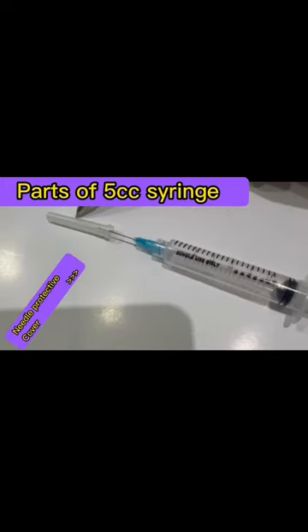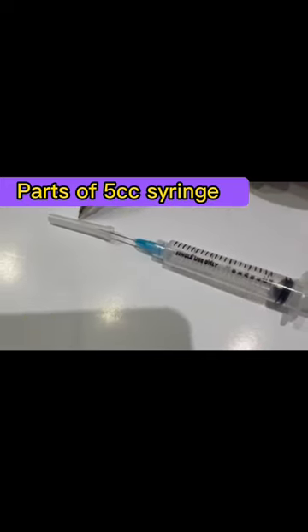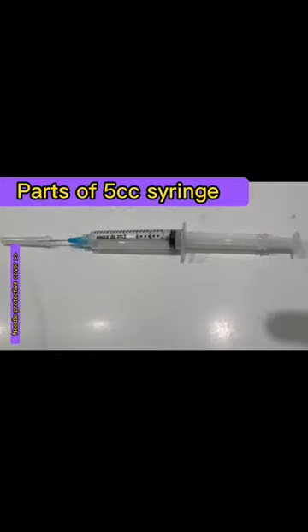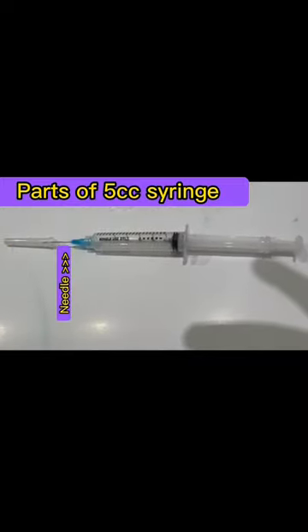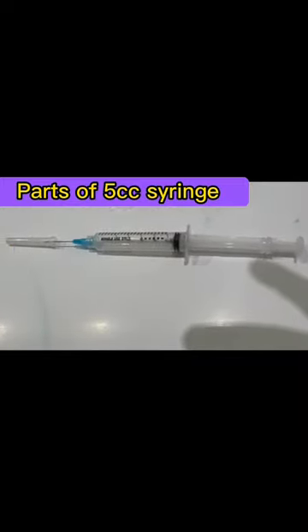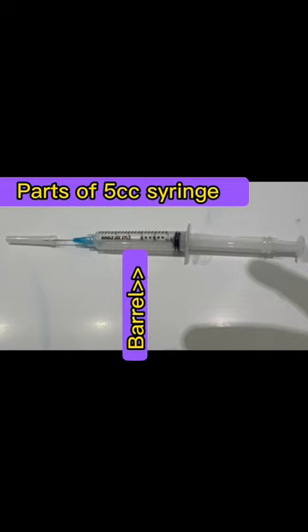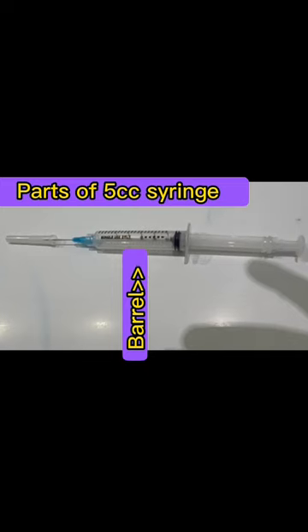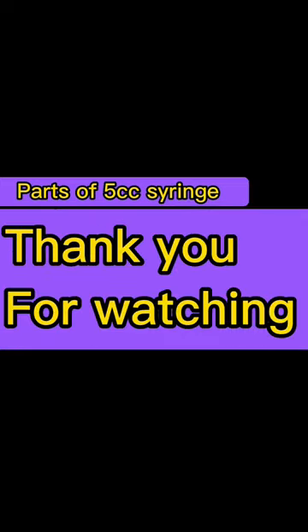This is the needle cap, also called the needle protective cover. This is the needle, and this is the needle hub. This part is the barrel, and this is the plunger. Thank you.